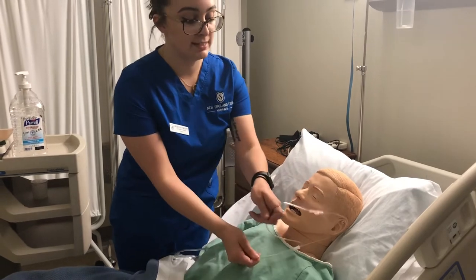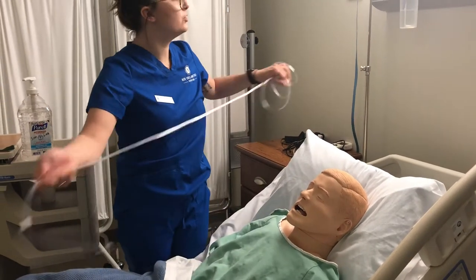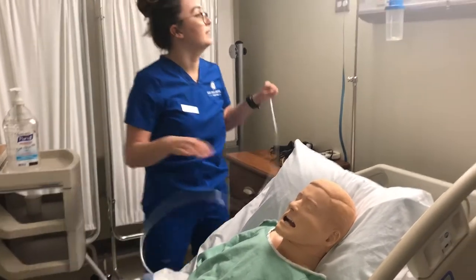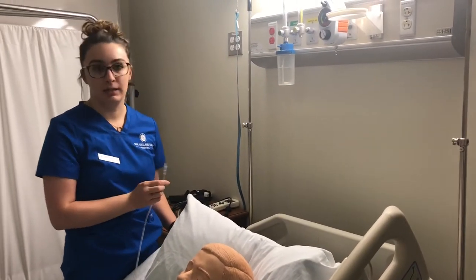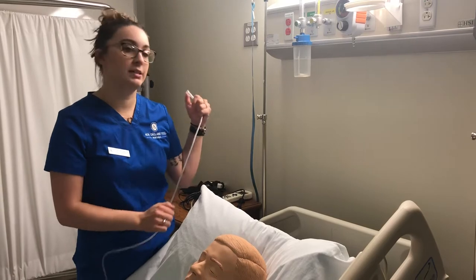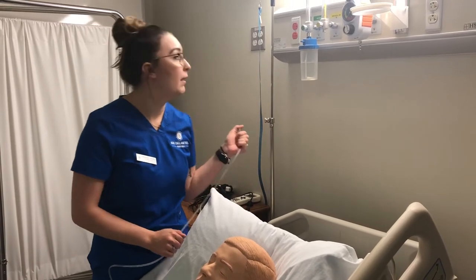When setting a nasal cannula to the oxygen, you would set the flow rate at 1 to 6 liters — 1 being the lowest, 6 being the highest — at an oxygen percentage of 24% to 44%.